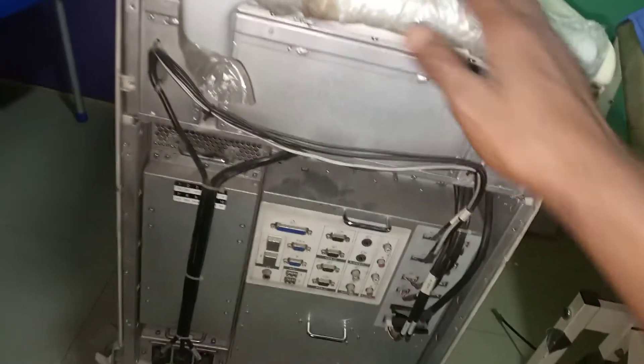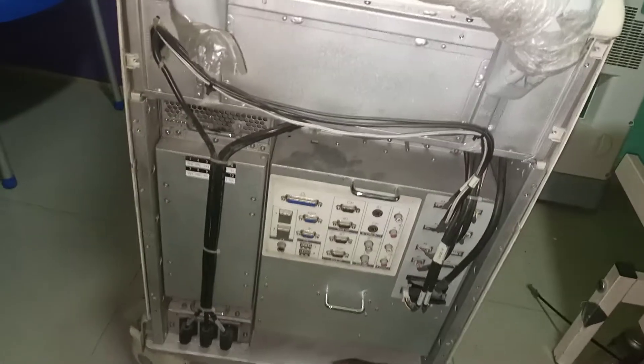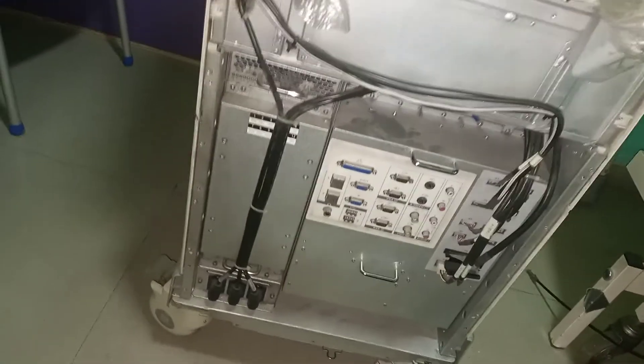This is the CPU — the module, the brain — that is embedded inside this machine entirely. Is that understood? For any questions, you can ask. Thank you.